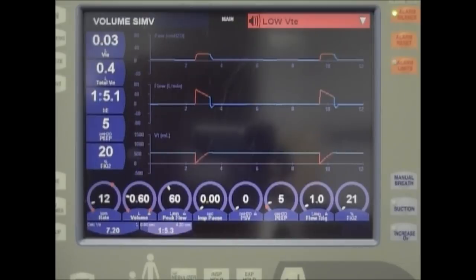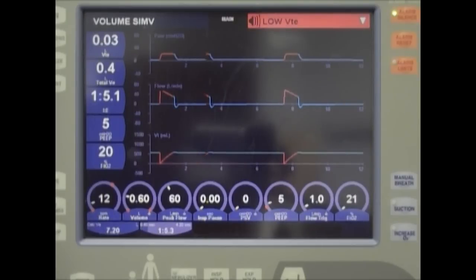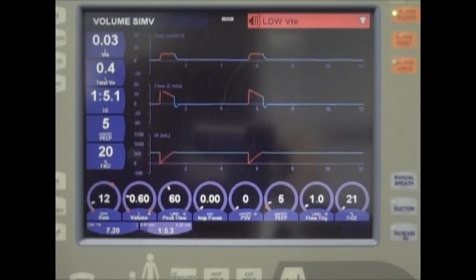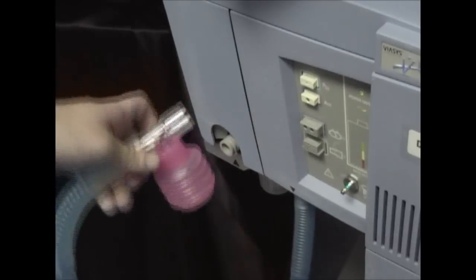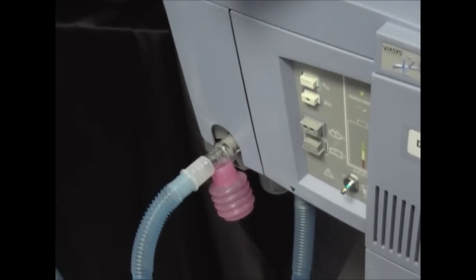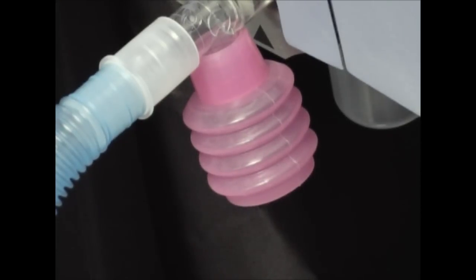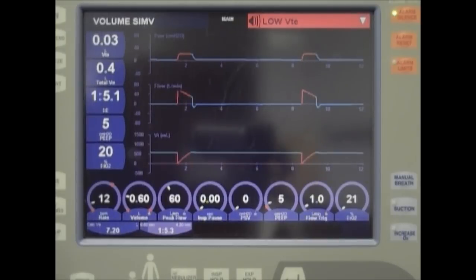The EVR is a small bellows device that prevents nuisance alarms, which can occur when the Blum speech cannula is in use. It was developed to allow the low minute volume alarm to remain active at a minimal level. In order to prevent the low minute volume from alarming, we connect the EVR in line on the expiratory limb of the circuit at the expiratory inlet on the ventilator. The EVR works in conjunction with the compliance of the ventilator circuit to return a small volume of air to the ventilator during exhalation.